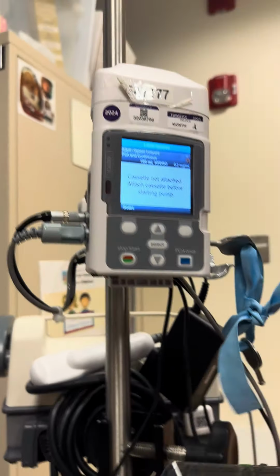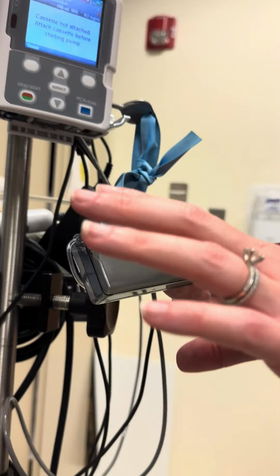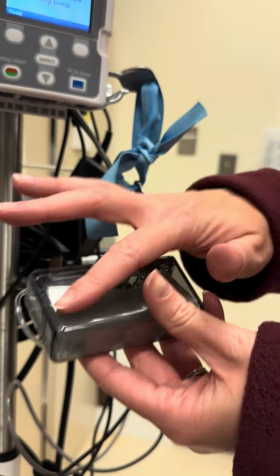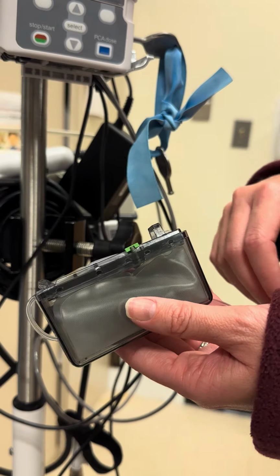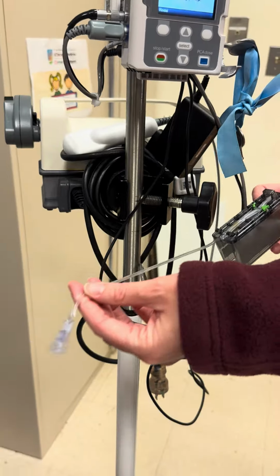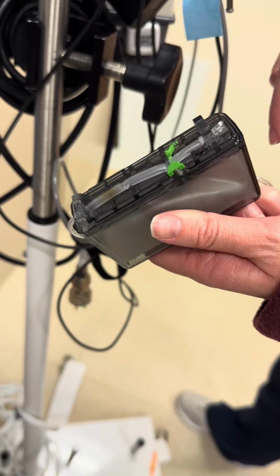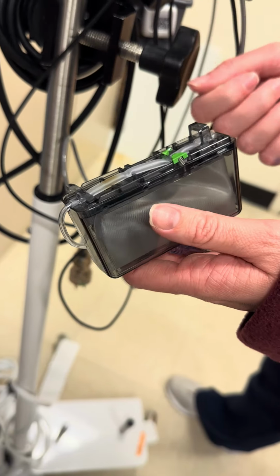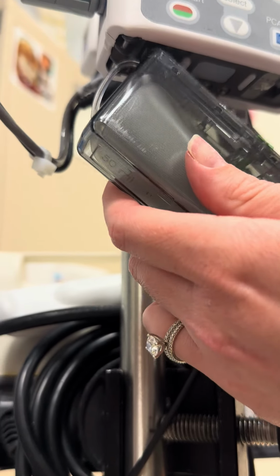This cartridge will come in a bag in the Omnicell. It'll be labeled and have a barcode on it. This has just been used before and it's for education, so we don't have a label. This little tubing will already be connected to it. And then up top here will be like a royal blue safety clip. All you have to do is just crack that off. So to put this in, these little hinges over here, we'll click into these.